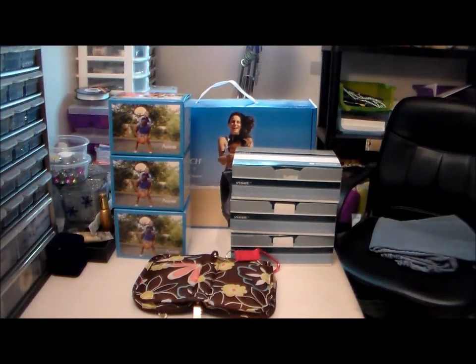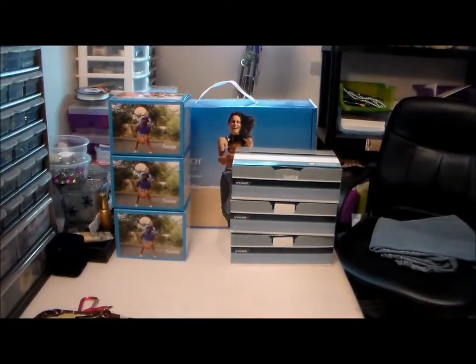Hi everyone, it's me. Guess what — I got it a day early! I already took it all out of the box. This is what I got, except for this thing I've already had — that's my meter case. It did come with one, the meter, but it's black. I don't like the all-black, but anyway.